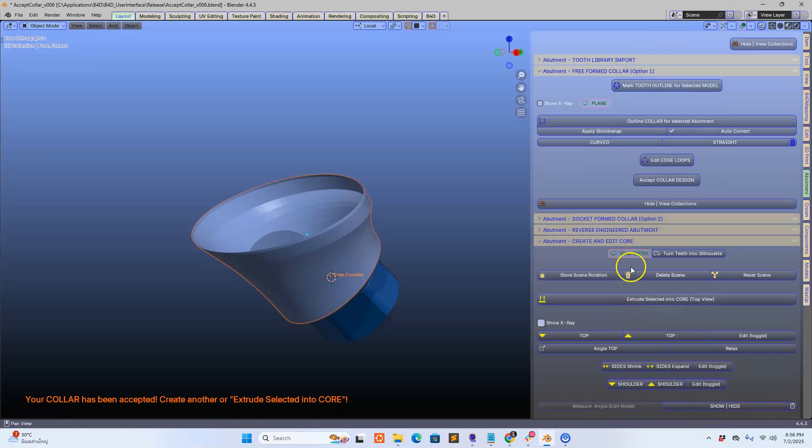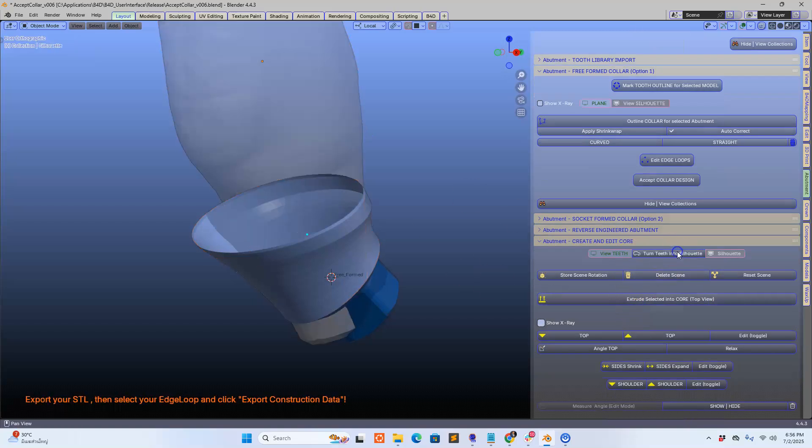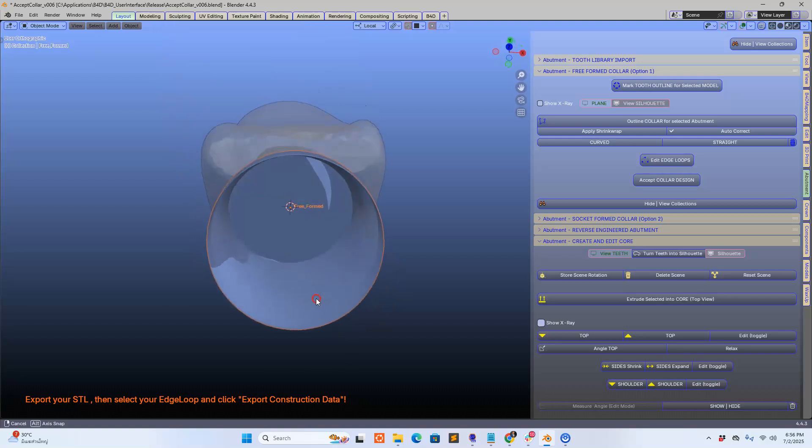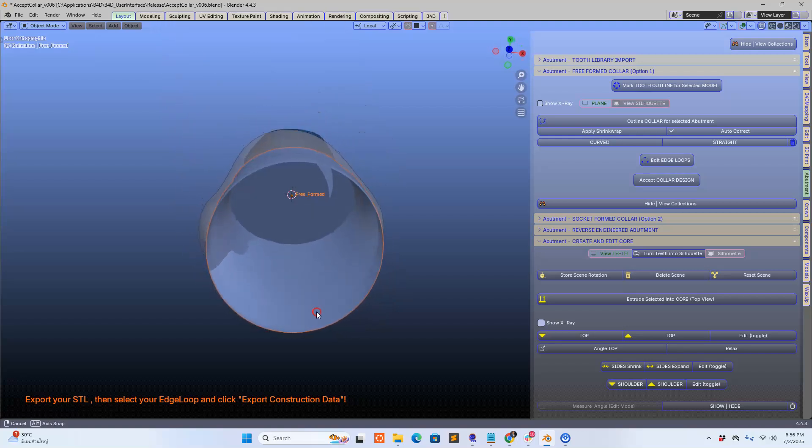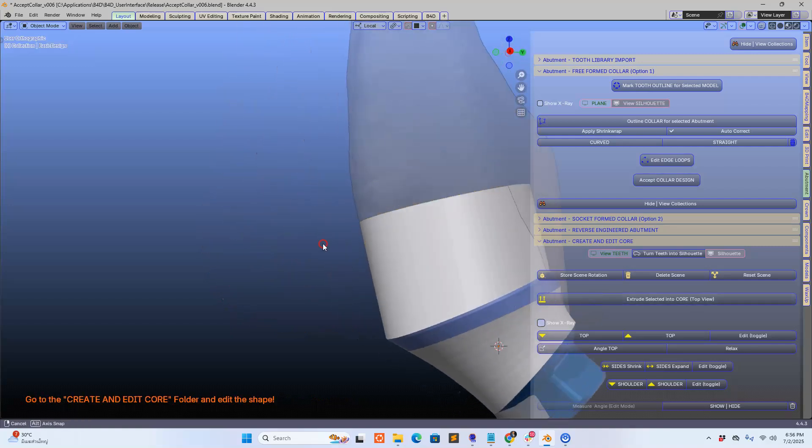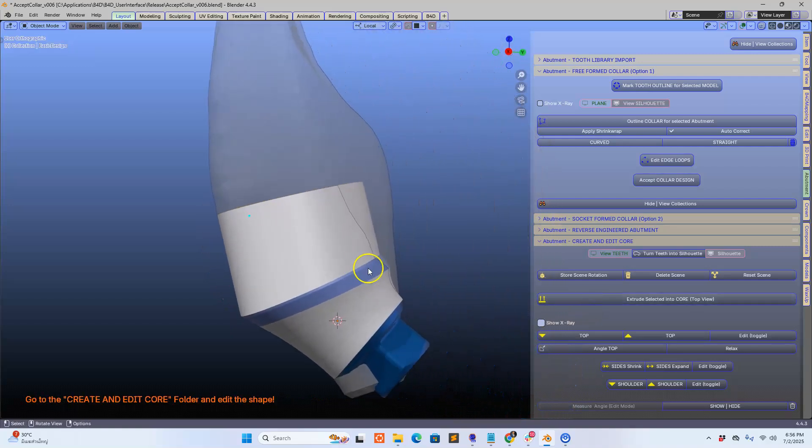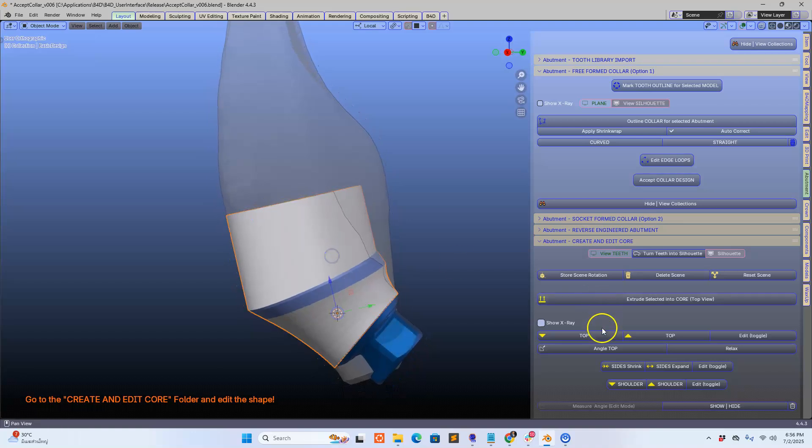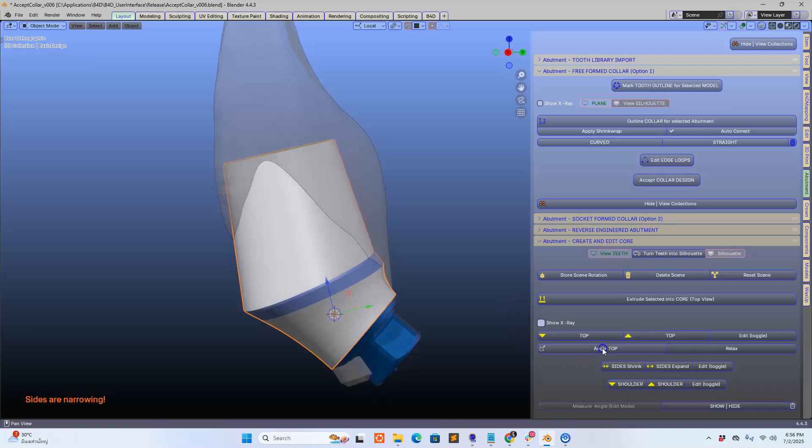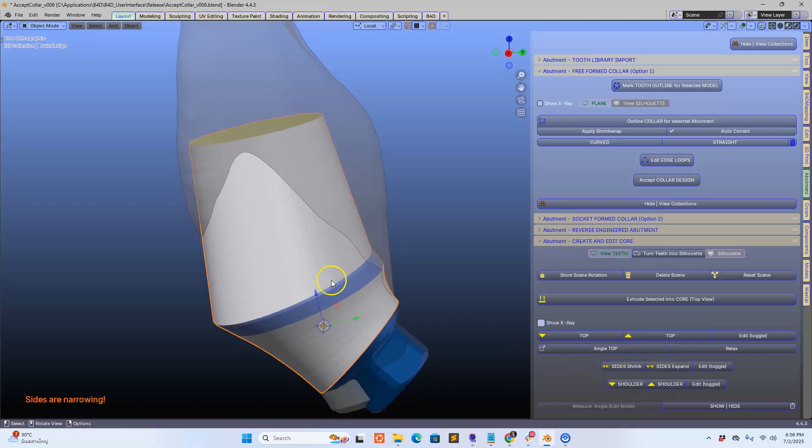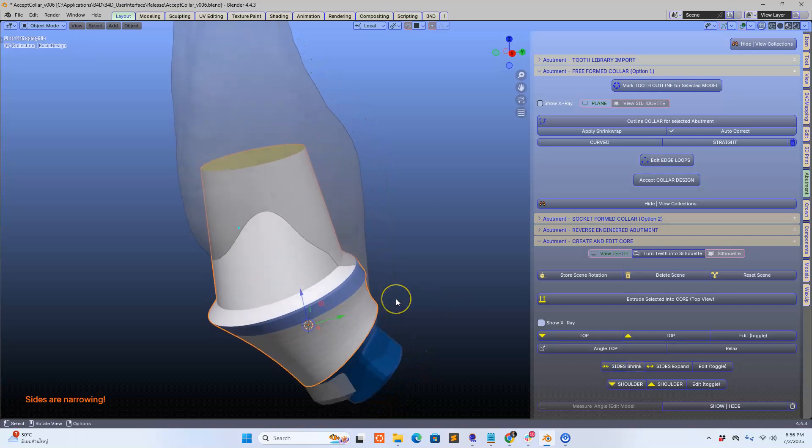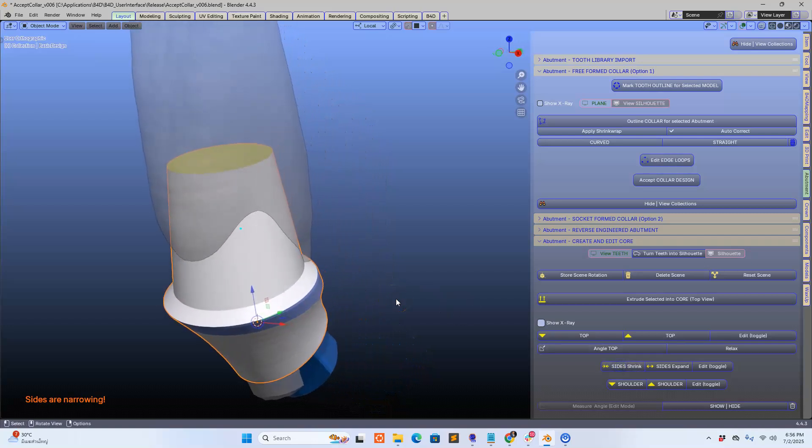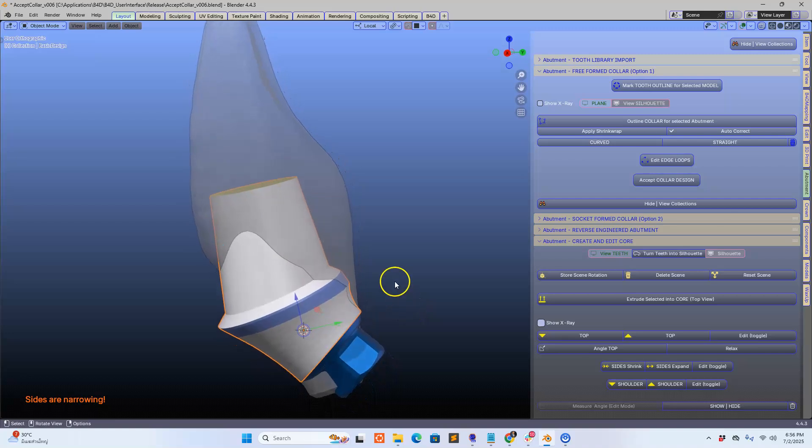We're going to edit this. We're going to view the tooth and make this into silhouette like that, and I'm going to be looking at it from the top side over here and I'm going to extrude it. This is the easy part. We're going to lift the top and then I'm also going to choose to angle the top and create a little bit of a collar in my abutment. So we're going to shrink the sides in like that a little bit. That's looking quite good.